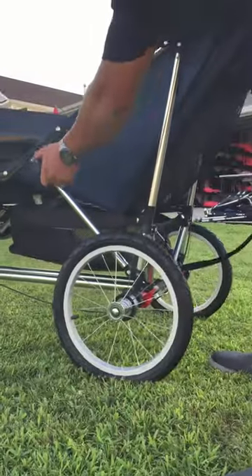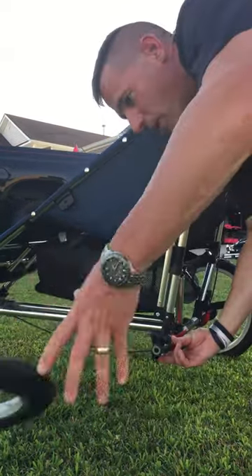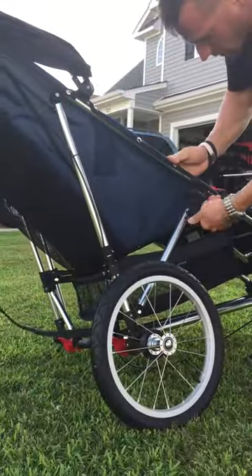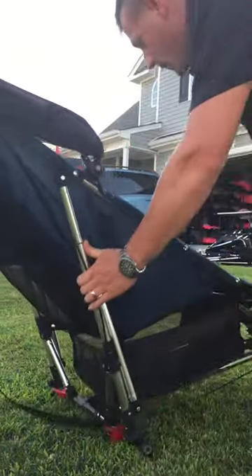While you're over here, go ahead, flip this and push in to release, and then there's a quick release button right here on the side that brings that tire down. Go ahead and pull the other side around and do the same thing — quick release, press the button in, quick release that tire and you're finished.